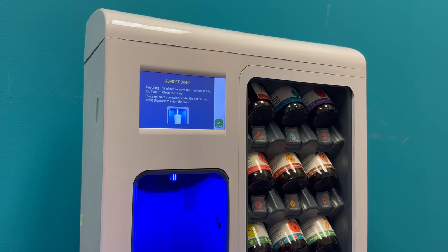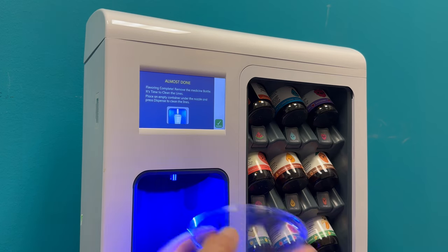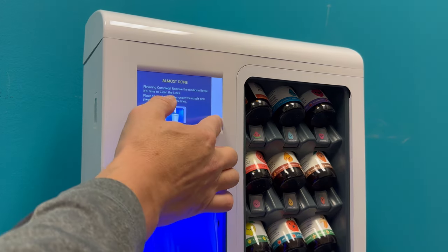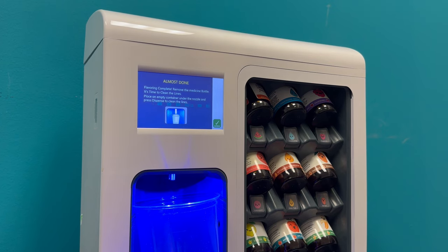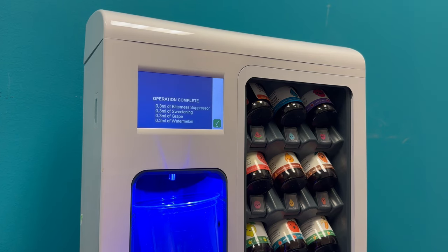Once the flavor has been dispensed, place an empty container in the dispensing chamber and press dispense again to clear the lines.